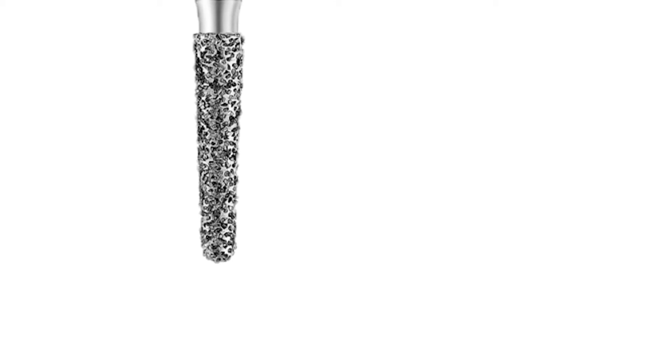Let's take a look at the EasyPrep 2 burr, the axial depth cut burr. The EasyPrep 2 burr is 0.85 millimeters at the tip. Some of you might be questioning that this 2-step technique actually saves time because of the time it takes to change burrs. My comment to you comes from principles of adult crown and bridge preparation. The shape and diamond design of the EasyPrep 2 depth cut burr removes tooth much more quickly than carbides or flame shaped diamonds. You are doing the bulk of the crown reduction with the fastest cutting burr possible. The few seconds it takes to switch burrs, you will more than make up in how fast you remove the bulk of the tooth structure.